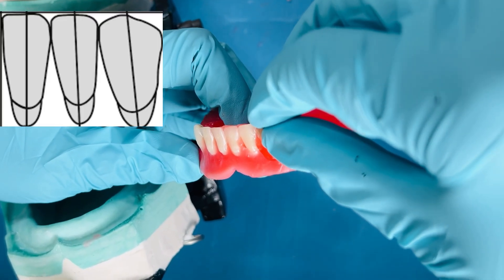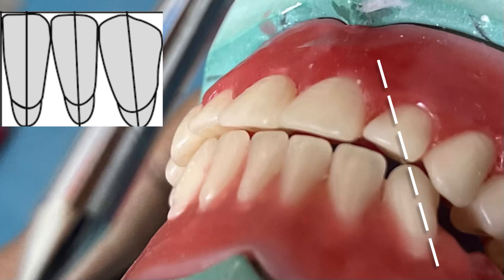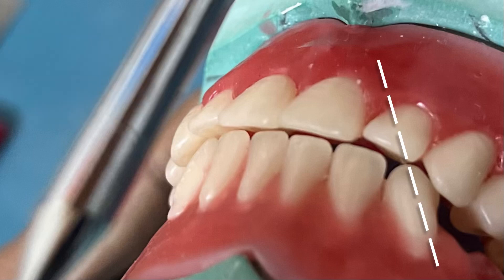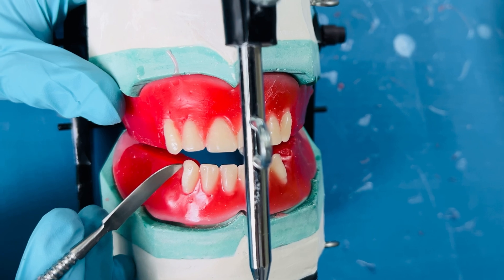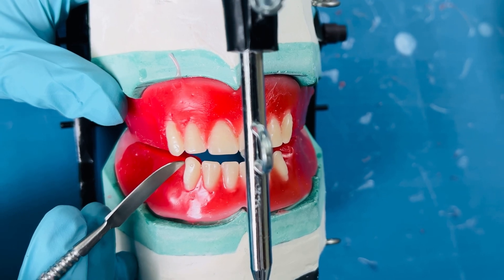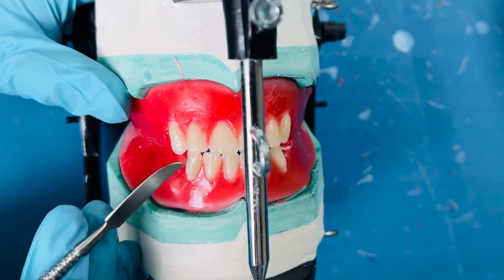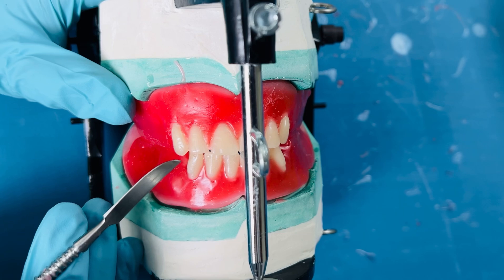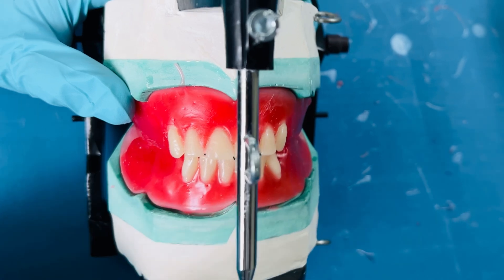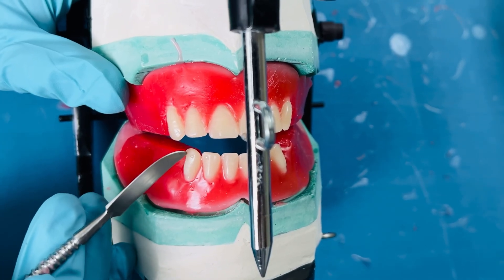Coming next to the mandibular canine — the long axis of the tooth is inclined mesially towards the midline when viewed from the front. When viewed from the side, the tooth is set straight without any labial inclination. This will make the cervical region of the canine very prominent.